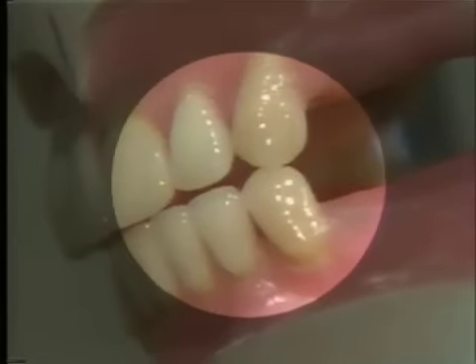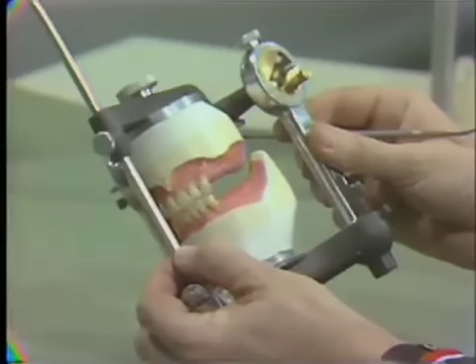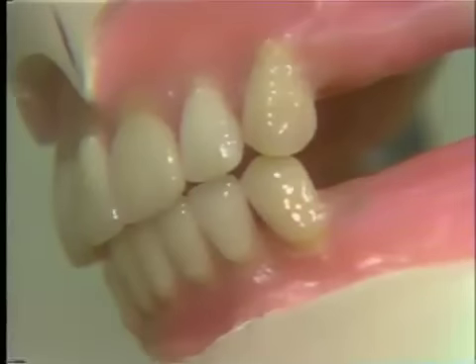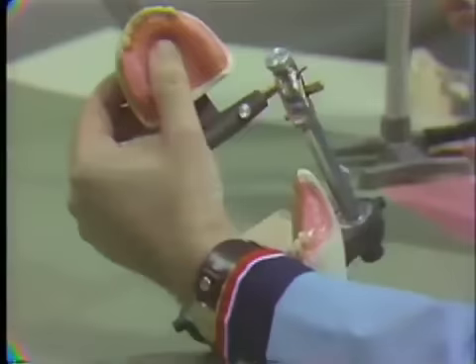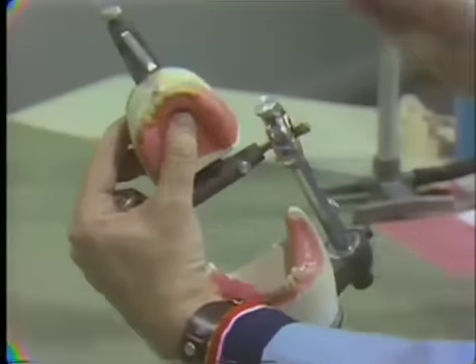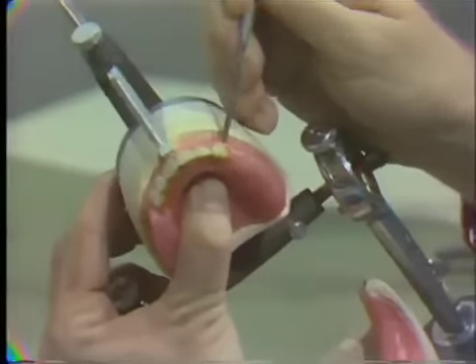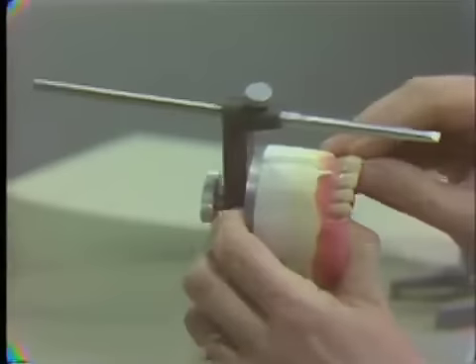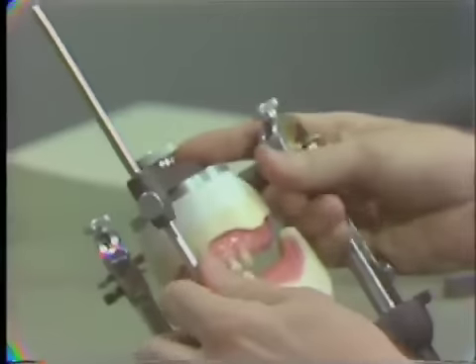This can be adjusted two ways. First we can adjust the upper or the lower by grinding on the tooth, or we can actually take the whole tooth and bodily move it out of the plane of occlusion slightly — and that's what I'll do in this case. We need minimal grinding for this exercise. So let's either move the lower tooth down or the upper tooth up. In working on a practical case we have to think of aesthetics. I'm going to try to move this maxillary cuspid up slightly and see if we can clear so the cuspid does not become the only tooth that contacts — and take that pin off the incisal table. This reemphasizes the point that in denture occlusion we are not striving for a cuspid guided occlusion.